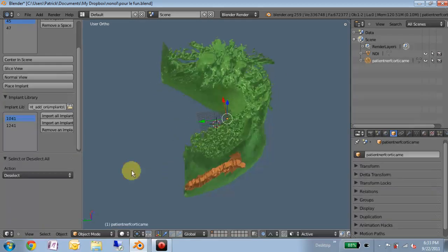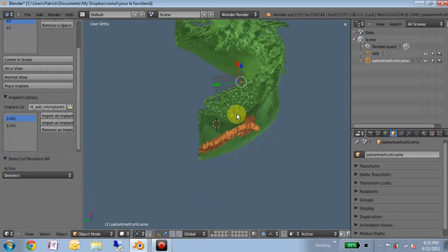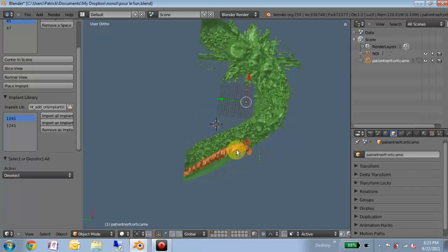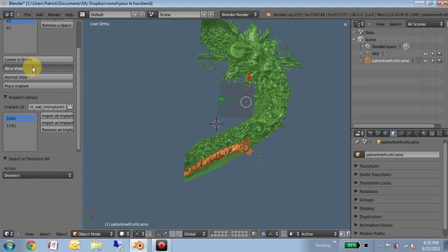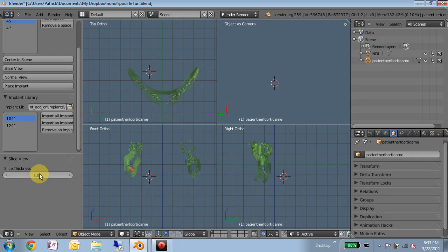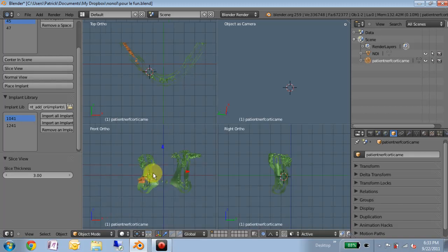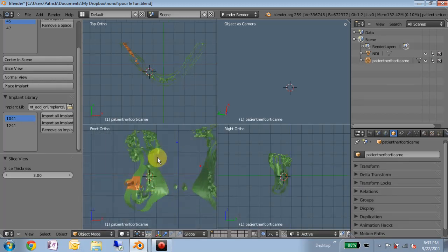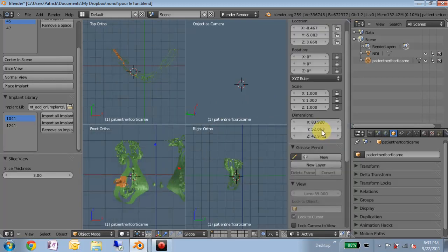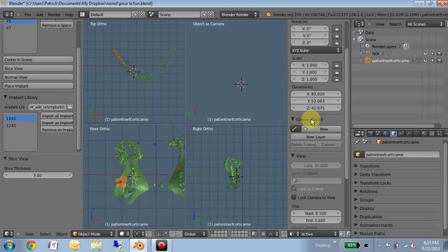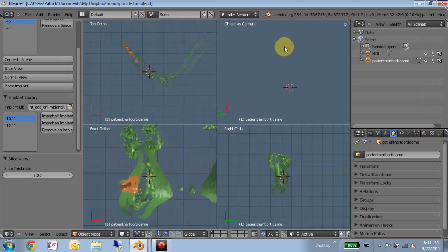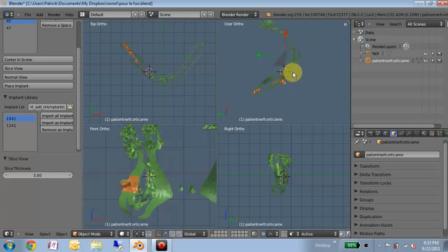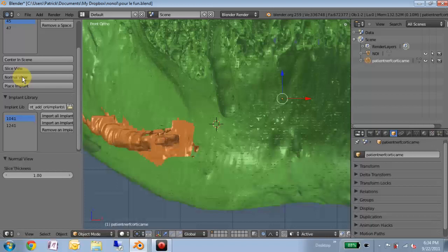So I've added this function called slice view, which will simply split the view into the quad view and also limit the view to a slice thickness. We can adjust the thickness to maybe three millimeters. And then we can look at where we're going by placing the cursor. The cursor location, having the view snap to the cursor location is critical for this to work. So you want to lock the cursor right here. And then this seems to always appear blank until you move around, but this will be a view that has the same thickness as the others, but you can adjust the viewing angle. And you can go back to normal view.